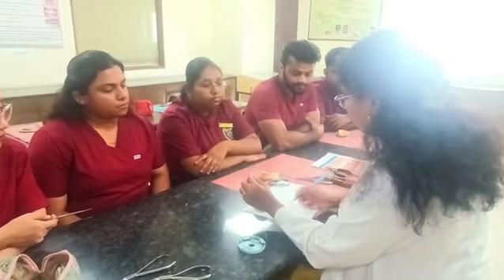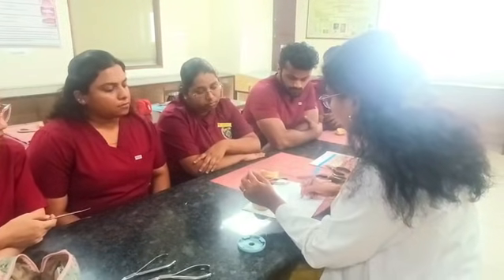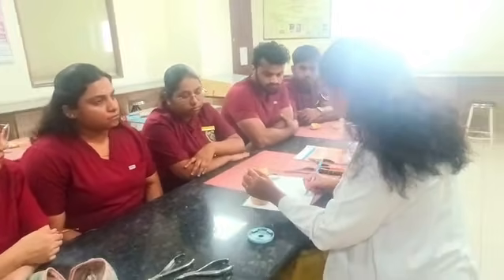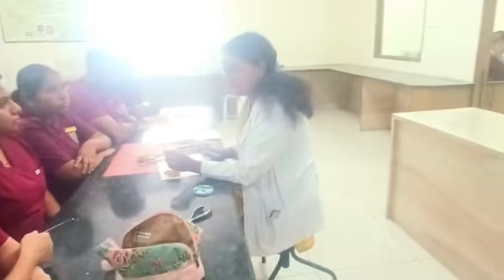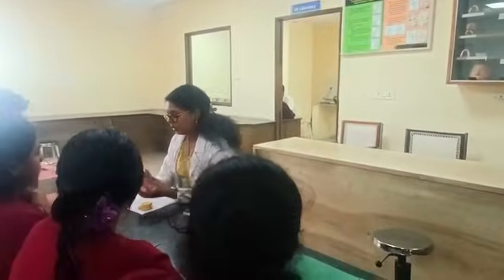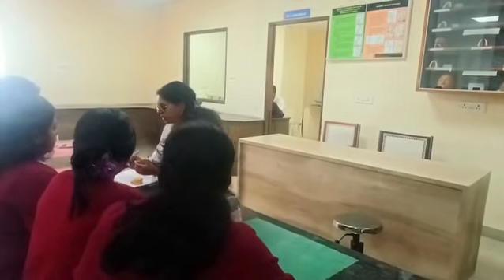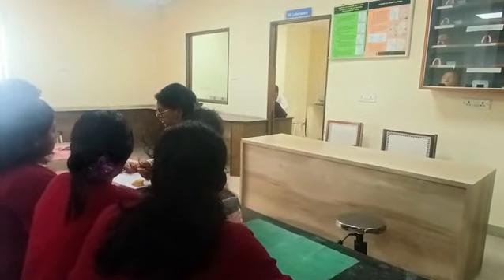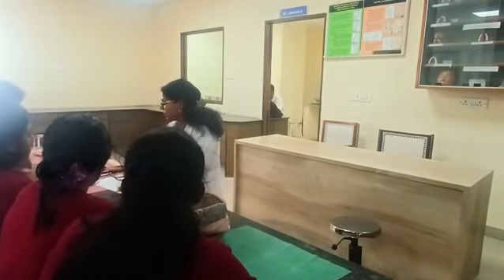Generally, what happens when you fabricate? After making the arrowhead, there is a tendency for it to flare when you adapt. This is generally wrong. This is how it happens when you start making your arrowhead and you are giving a 45-degree angle. So to avoid that, you can give this overlap, right? So when you do that, it will be tapered like this and it will engage your undercut. That's why this overlap is given.